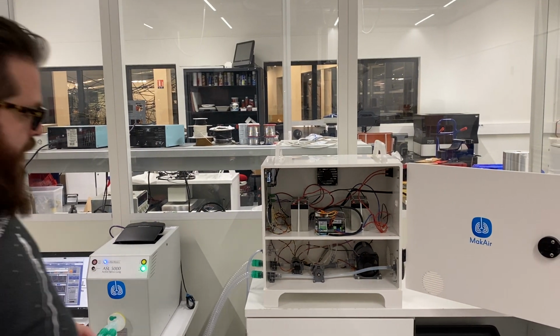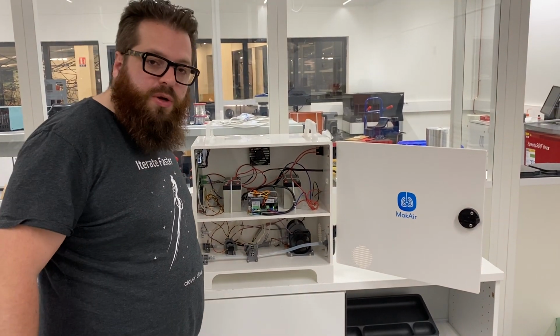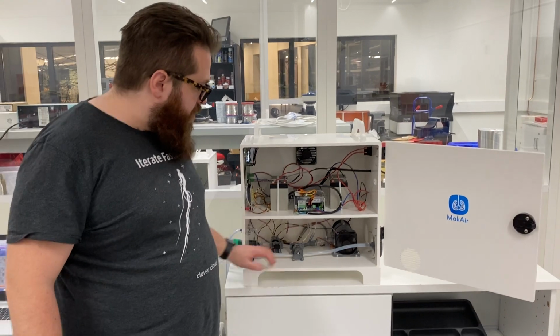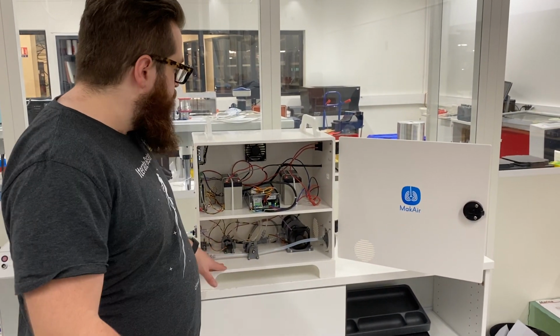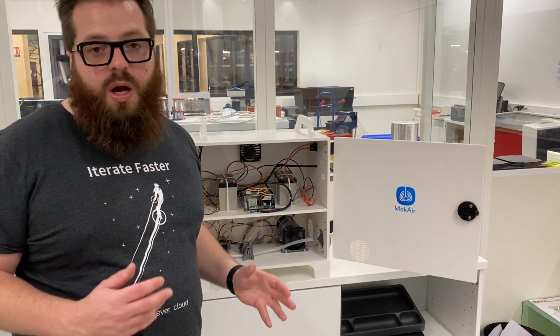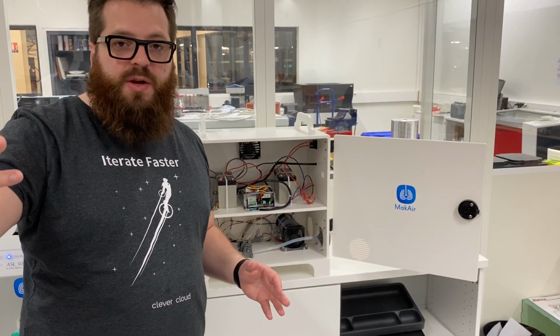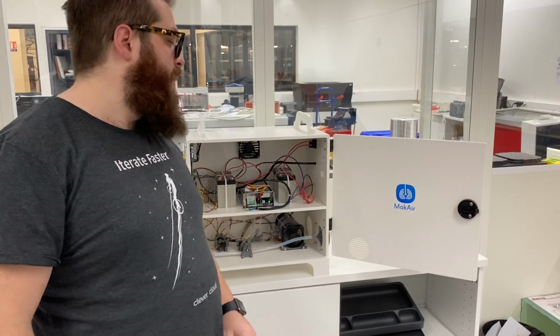Then you put all the pressure directly to the patient. When it comes back from the patient, there is another valve there to maintain the expiration pressure, and that goes through a filter to be sure that you will not put any virus in the environment and infect, for example, the people helping the patients.